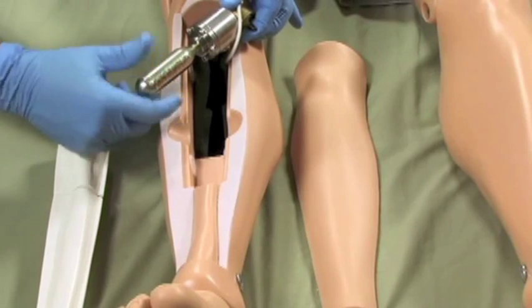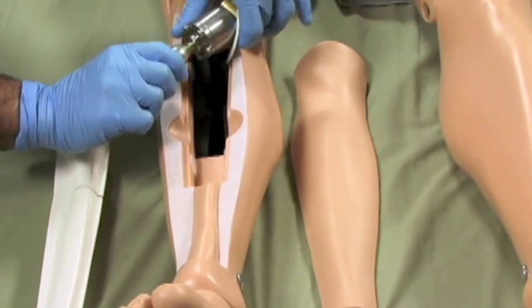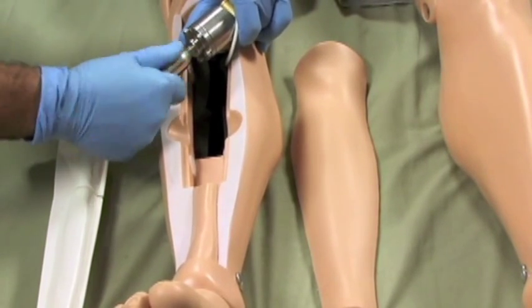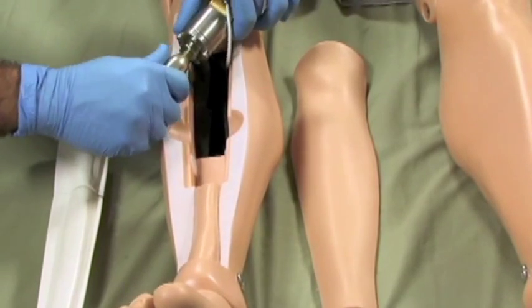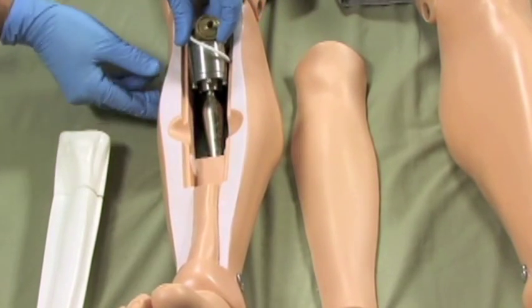Enable this feature by mounting a replaceable cartridge of CO2 on HAL's lower right leg. The instructor can then adjust the level of exhaled CO2 through the software.